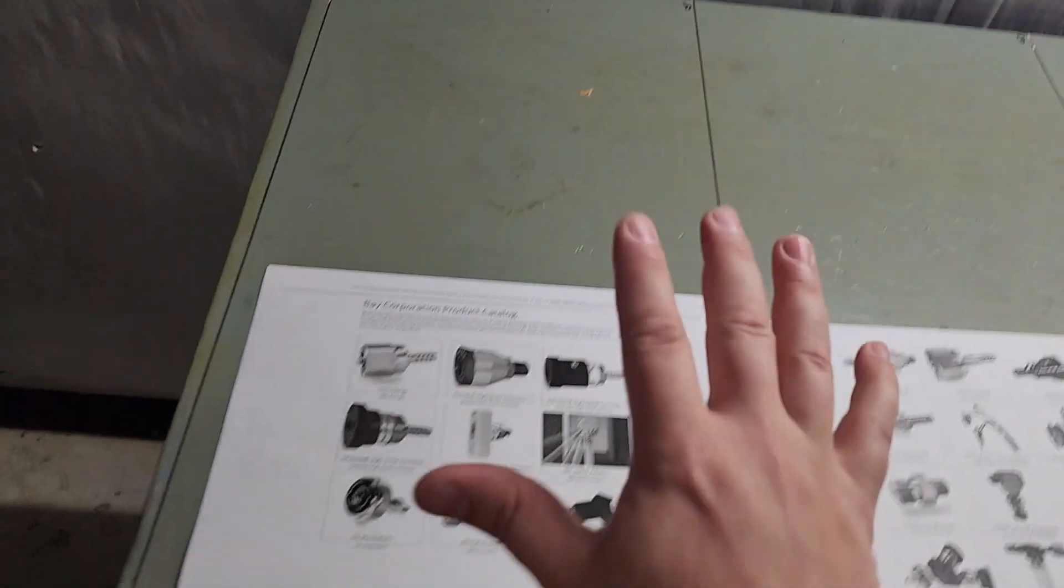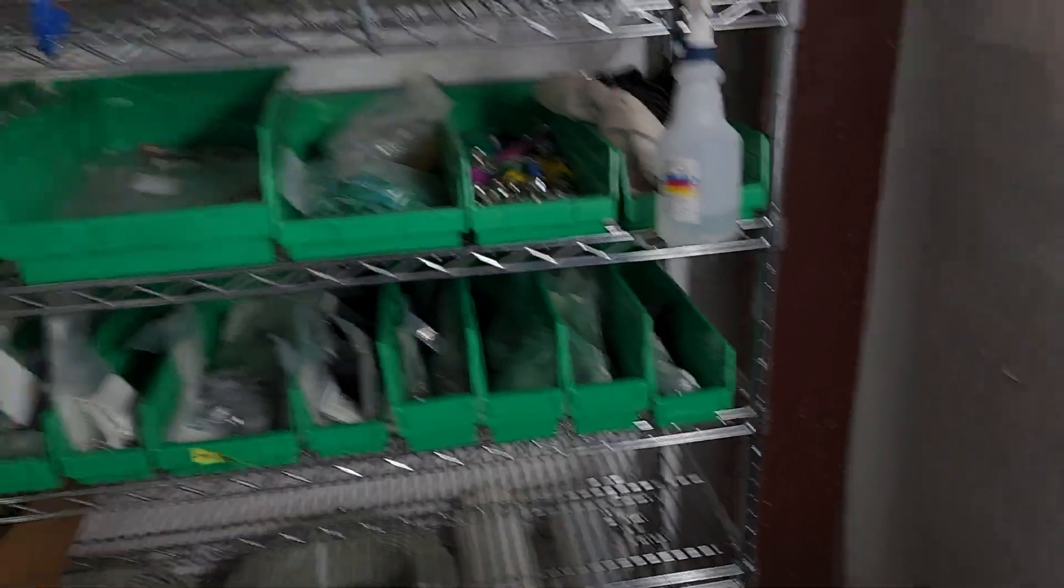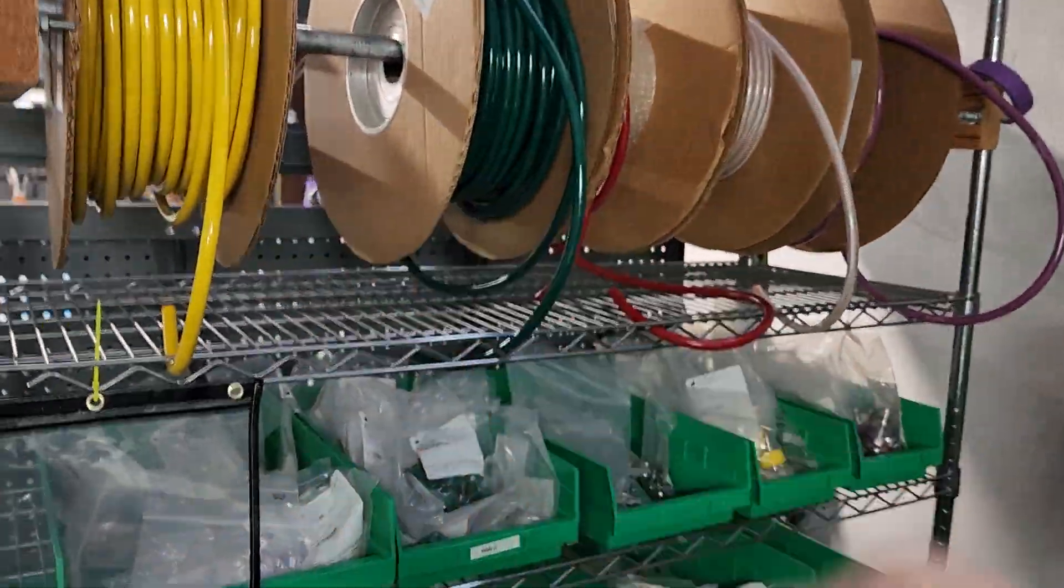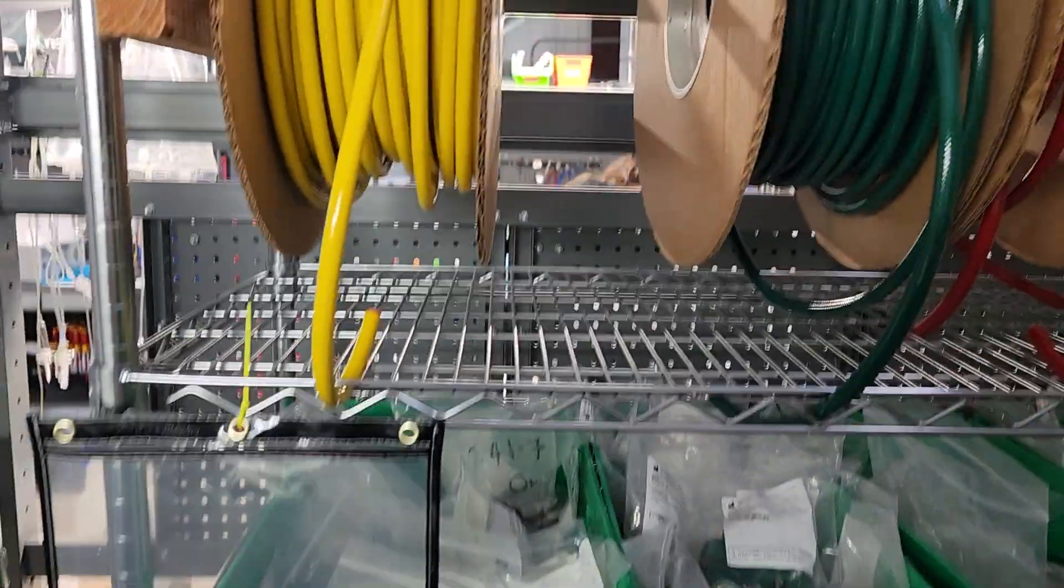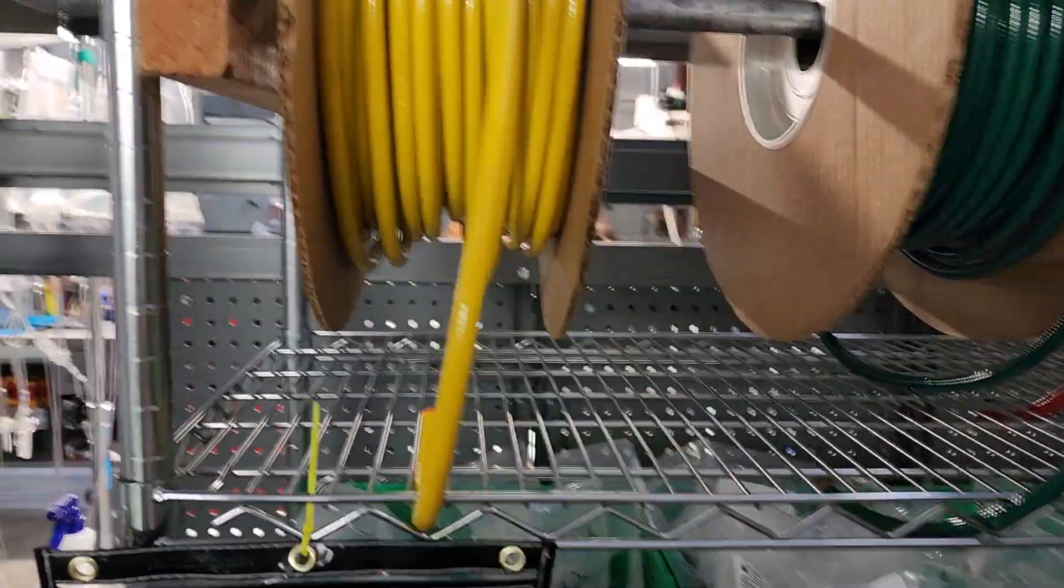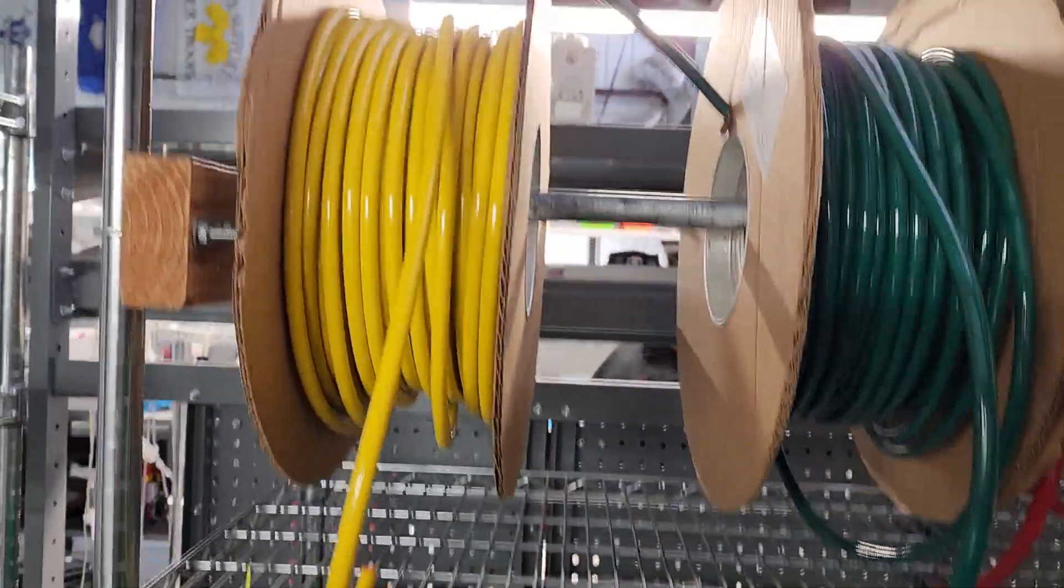We're going to go through all of these. One of the most common ones you're going to see is this yellow tubing, and the yellow tubing is going to be med air.